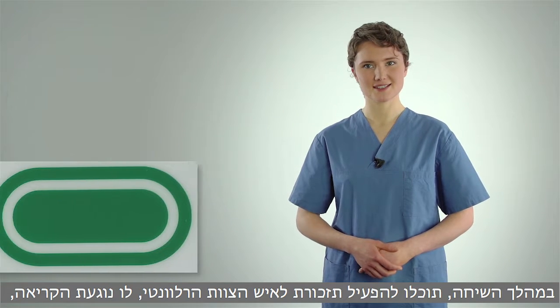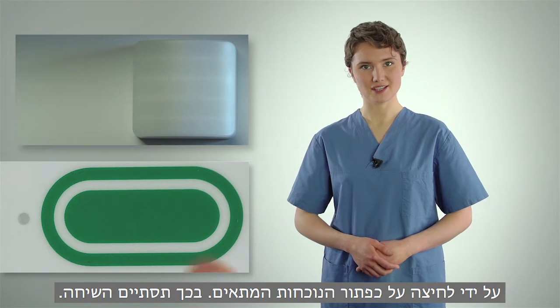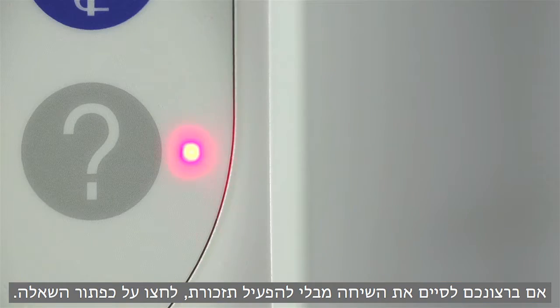During the conversation, you can activate a reminder for the staff concerned by pressing the appropriate presence button. This will end the call. If you want to end the call without setting a reminder, press the question button.